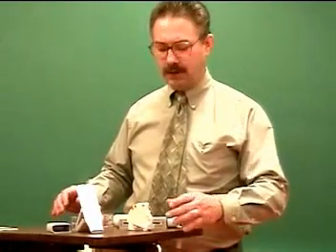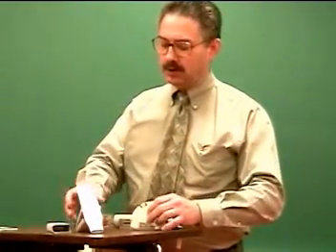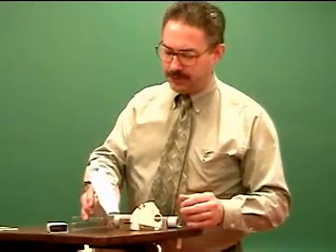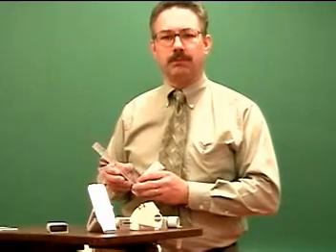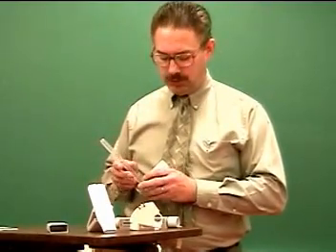This procedure is how to do a peak flow. In front of me I have various peak flow meters. There are many different styles, and so each of them you'll need to make sure you understand how they work. Essentially they all do the same thing.